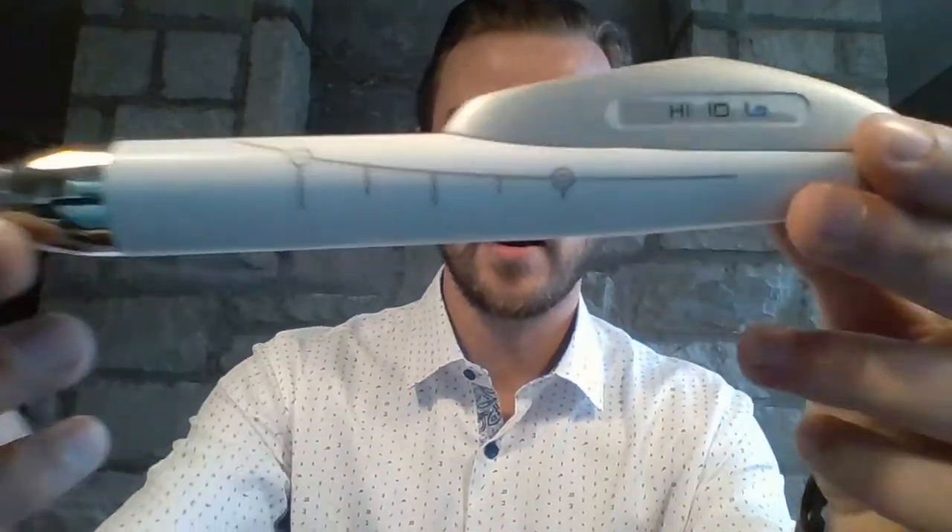The Quick Sleeper has three injection modes, as you can see on the handpiece here, to perform all dental anesthesia techniques including intraosseous and infiltration — painlessly and effortlessly. With this tool, intraosseous anesthesia has become the primary method for local anesthesia, due to the efficiency for the dentist but most of all for patient comfort.